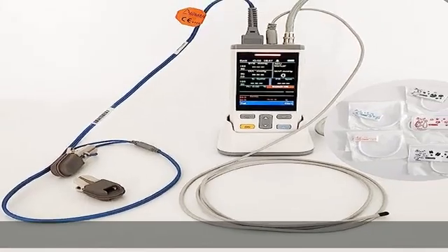Lithium ion battery power supply. Check the description to get this product today at the best price.